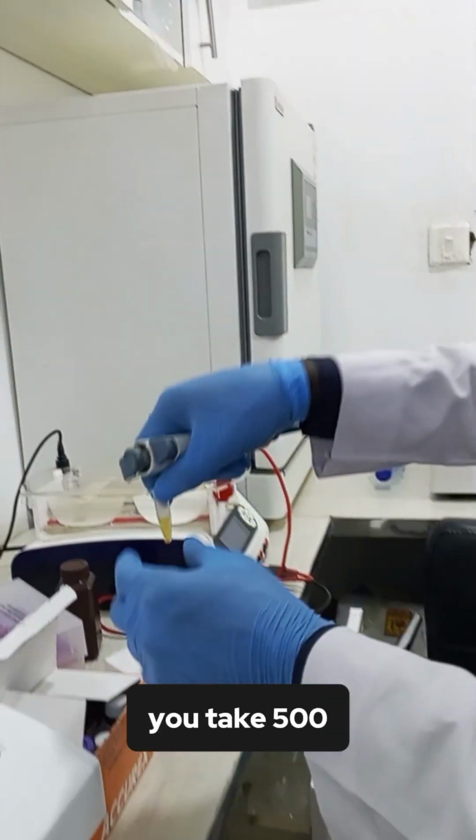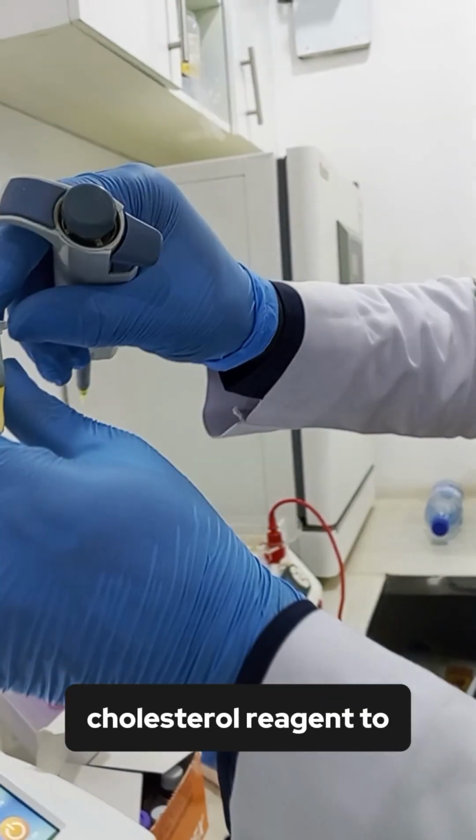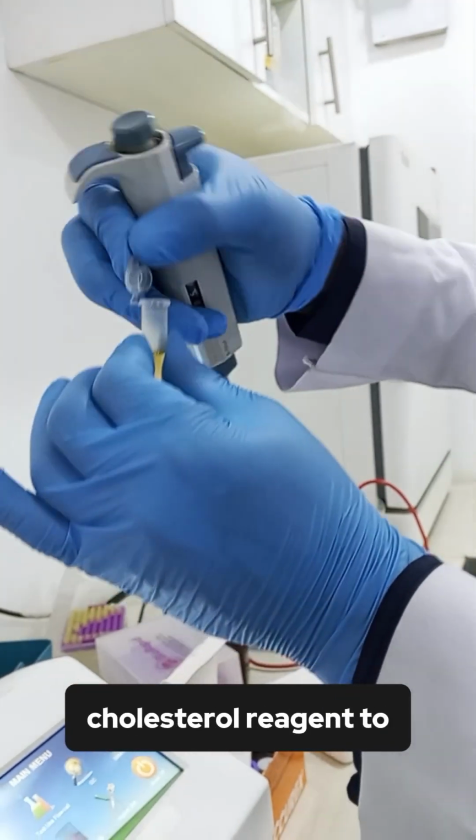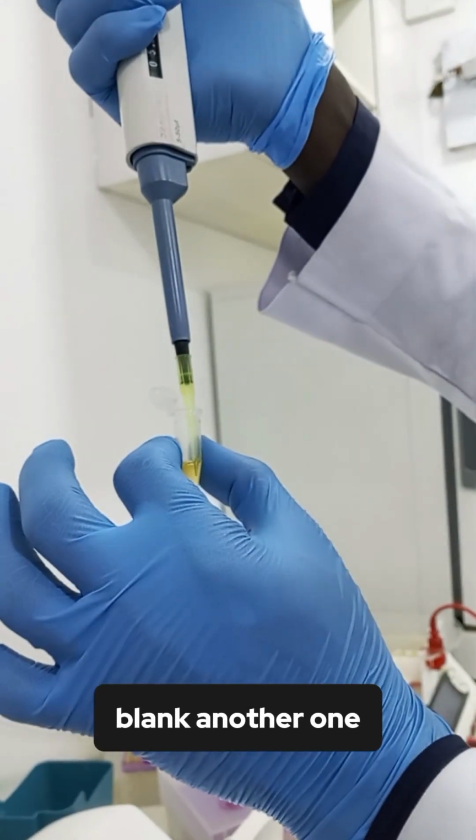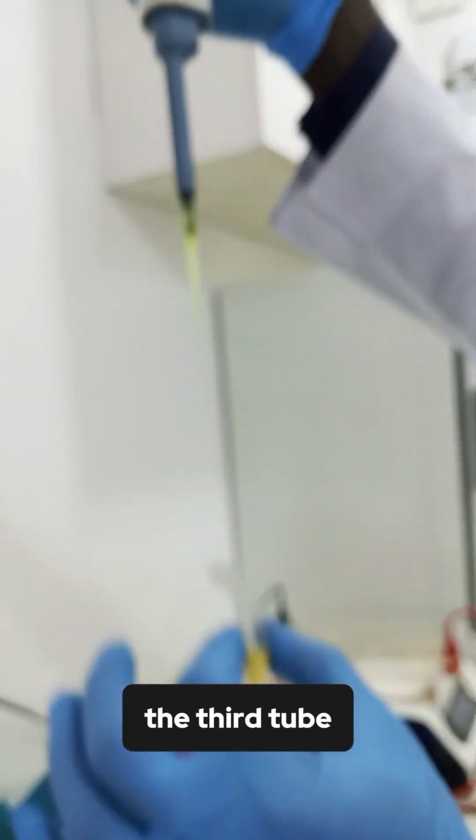After that, you take 500 microliter of your cholesterol reagents to 3 tubes, one for blank, another one for standard, the third tube is for our test.